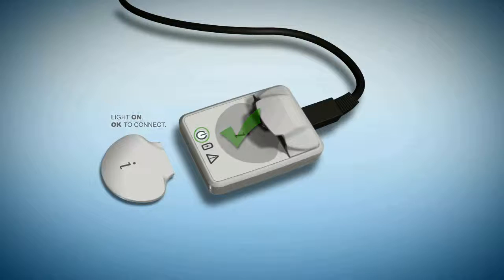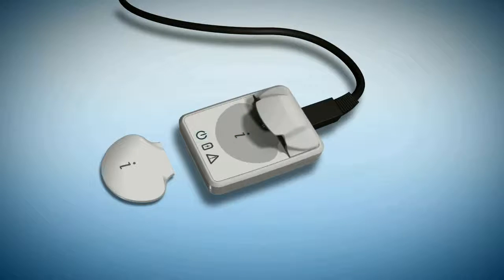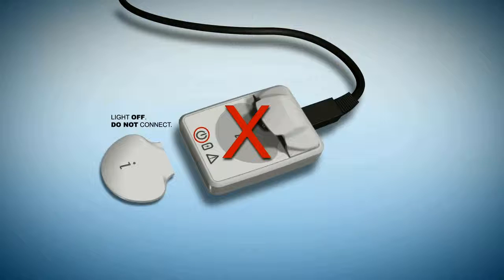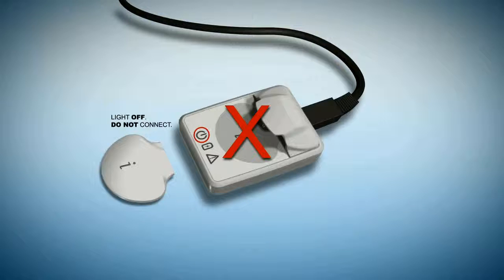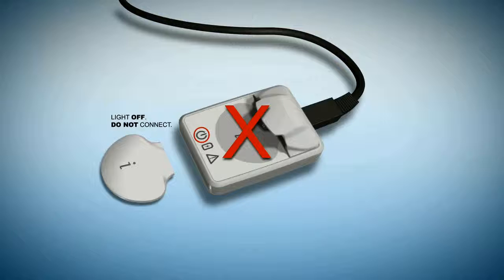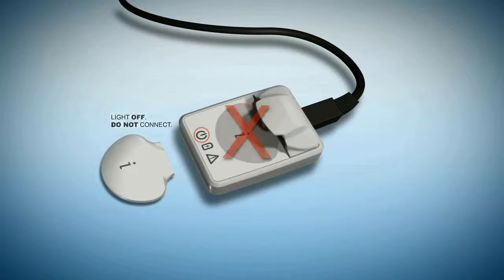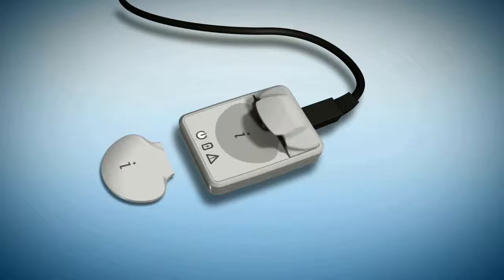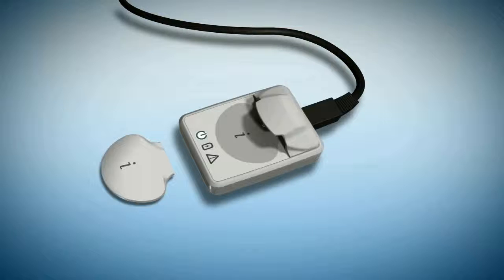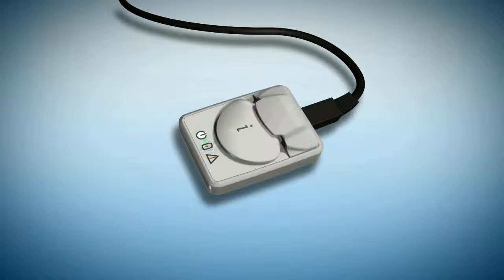It is very important to verify that the white light on the smart dock is on, meaning that sufficient power is being supplied to the smart dock. Connecting the iPro 2 to an unpowered dock or without sufficient power may erase all of the data from the iPro 2 recorder. Once the smart dock is connected to the computer, connect the iPro 2 to the smart dock.